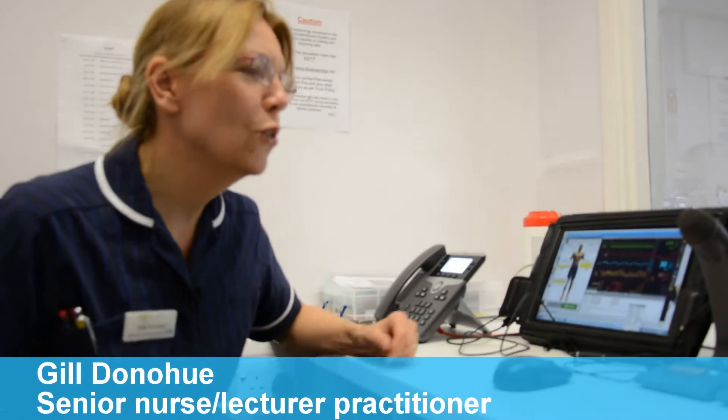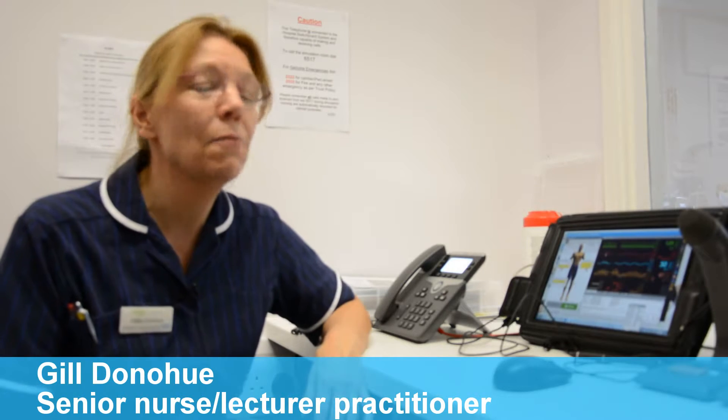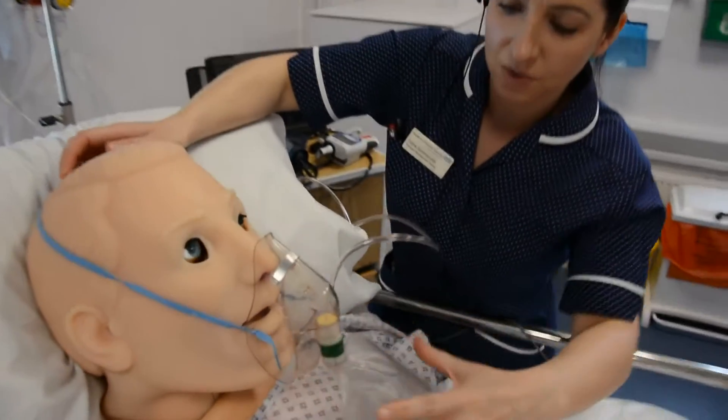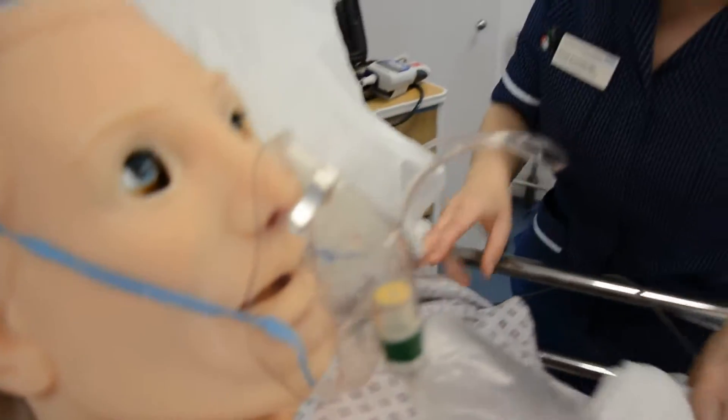We're in the control room of the simulation suite here at Southend. We can set up the simulation suite to mimic any sort of environment within the clinical situation. At the moment we've got it set up for a ward-based environment and we can run scenarios for any groups of different people, clinical staff, to manage patients.